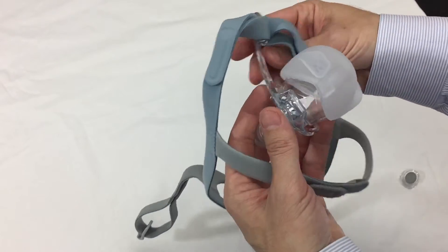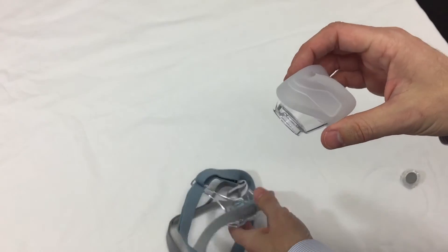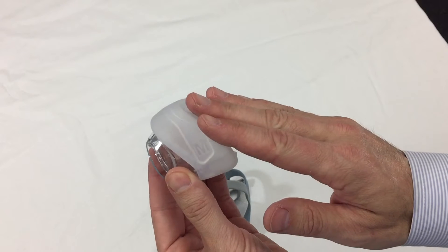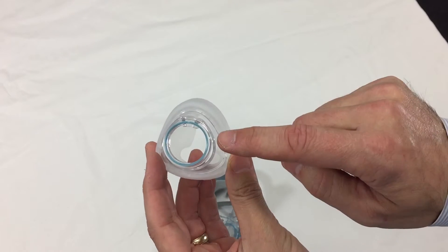It will barely touch though, so it will not leave strap marks. And the cushion pops off. This is their roll fit design, similar to the original. And it does what it's supposed to do. Create a good seal without having to be on your face real tight.